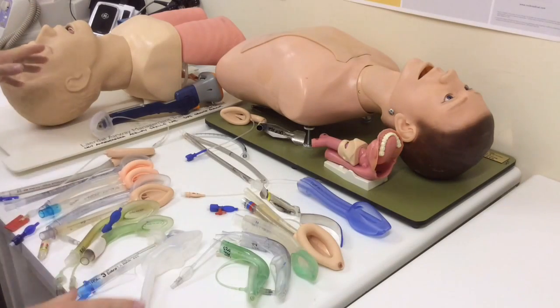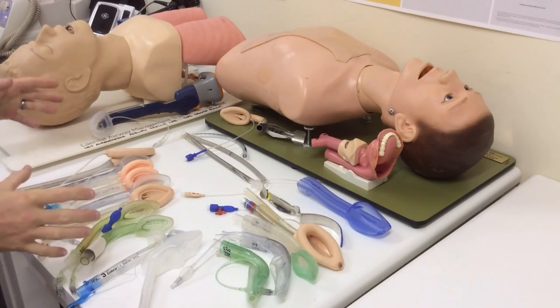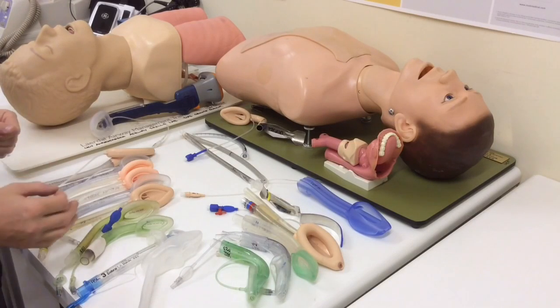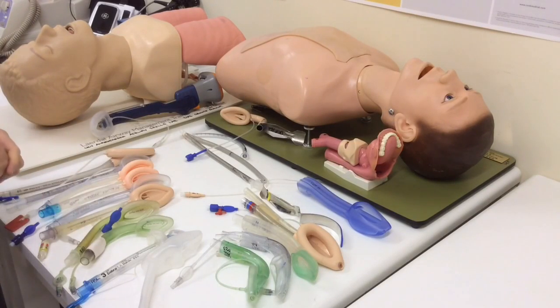Right, here's a whole different spread of supraglottics, and this is actually just a fraction of what's available on the market. There's some quite popular devices which I don't have examples of here in the lab, but I've got examples of the majority of the broad types, which is what's important. Now the classification of supraglottics is contentious, and there's some lovely stuff to read about this in the literature. There are two common things that we talk about. We talk about either the sealing mechanism of the device or we talk about the generation of the device.